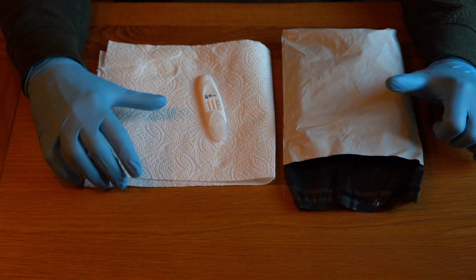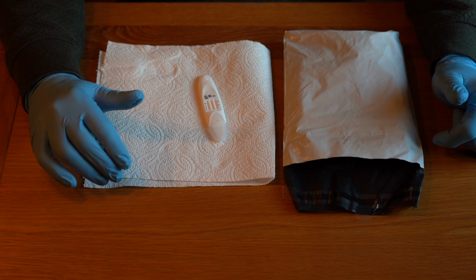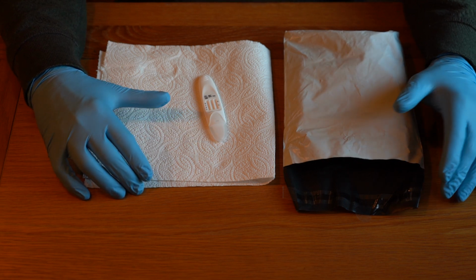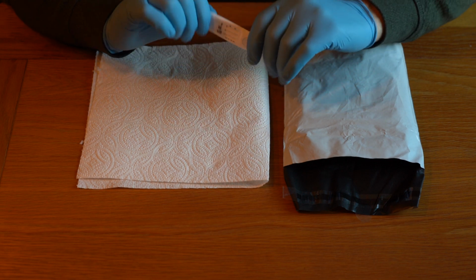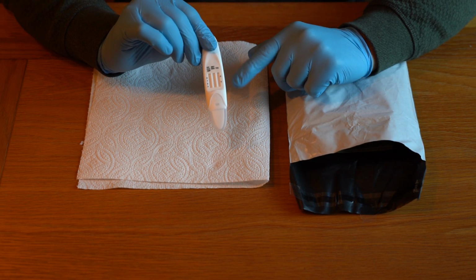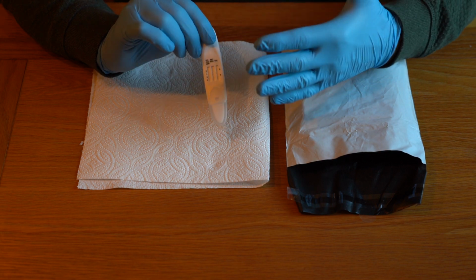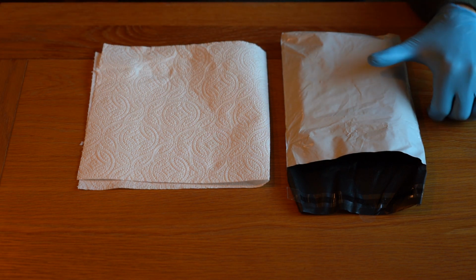So the employee has failed the first line indicative drug test. We now need to send samples of oral fluid off to the laboratory for a second line chain of custody test. So we know that the employee has failed for cannabis and opioids. So that's what we're going to be asking the laboratory to test for when we fill out the consent form. Put that to one side.